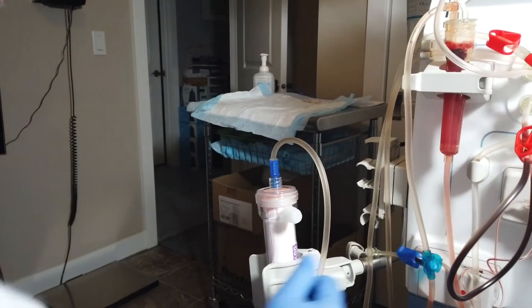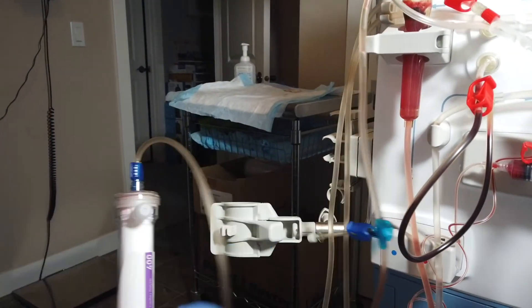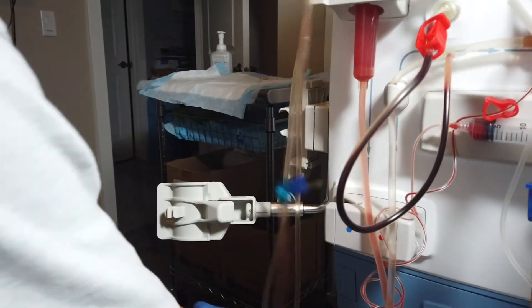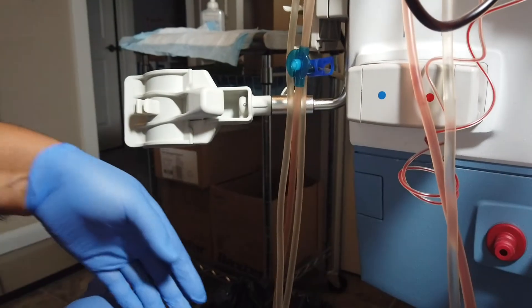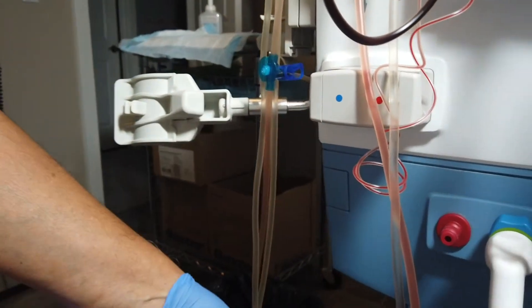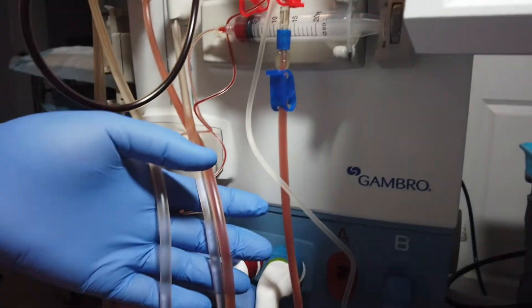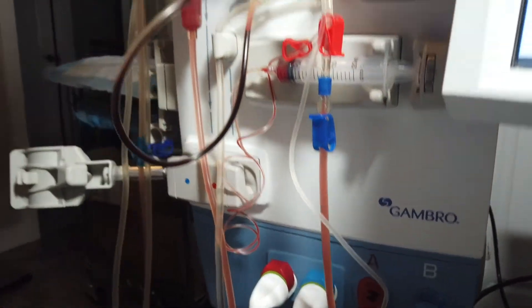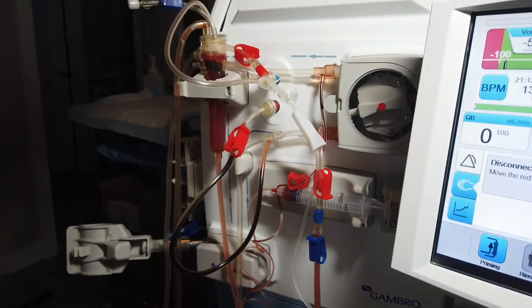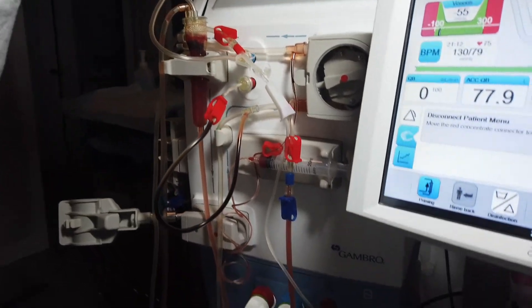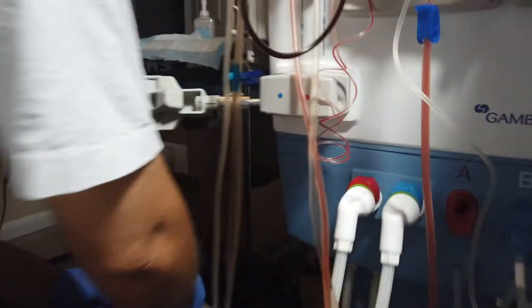There's a cap that I took off originally. Then I do the same thing for the red one. I shake the water out and always have it high. Then put it back. Now that removes the dialyzer.